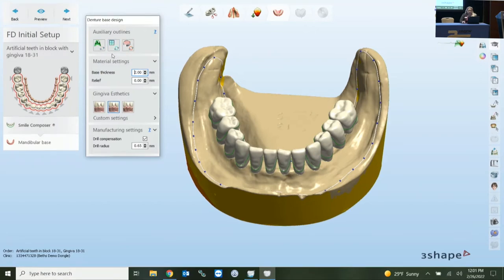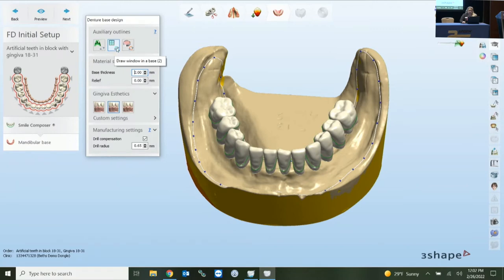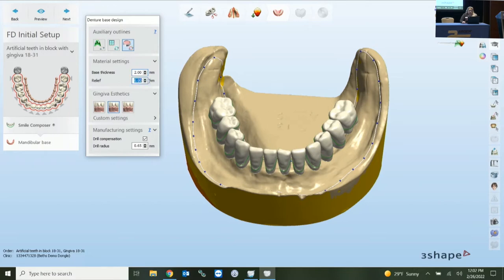This is specifically for removables and also applies to your RPD workflow. The circle icon at the bottom right of the tool tells you what kind of spline it needs — when it's a circle, connect the first dot and last dot to complete the function. Here is a secondary option for your relief zone. When you activate a relief zone, you're drawing a circle around the area and then assigning a relief zone setting — giving you the option to add relief without going back to the block-out feature.